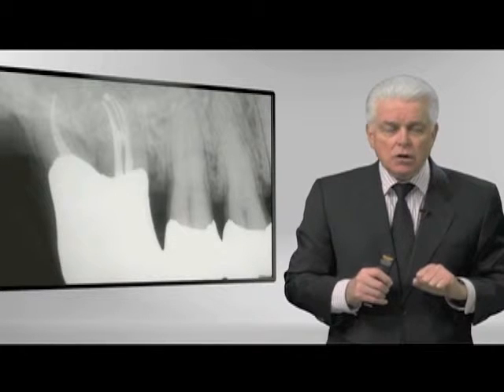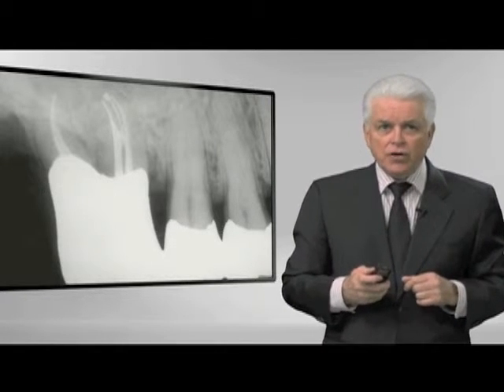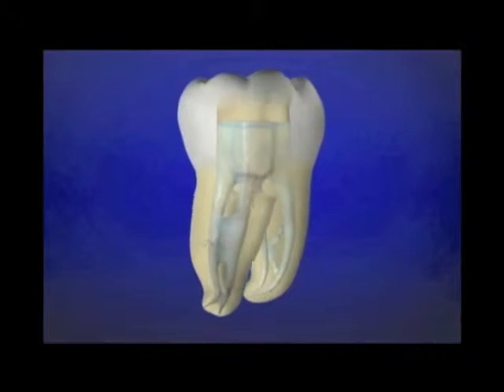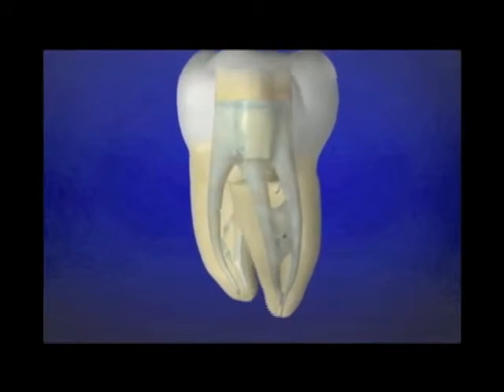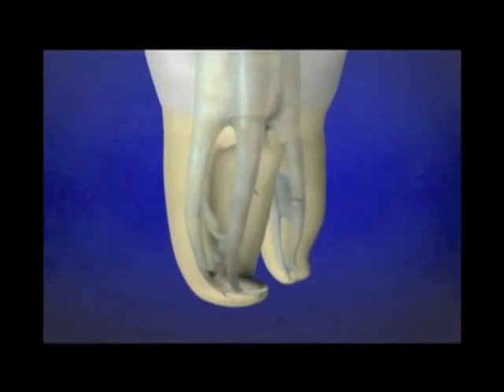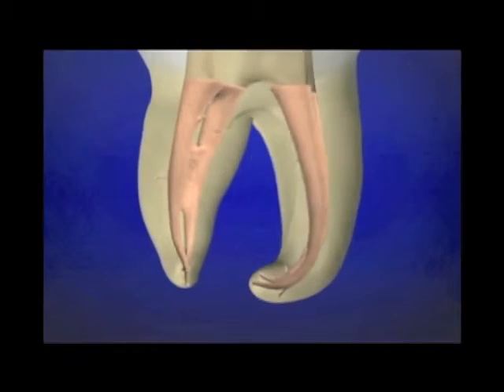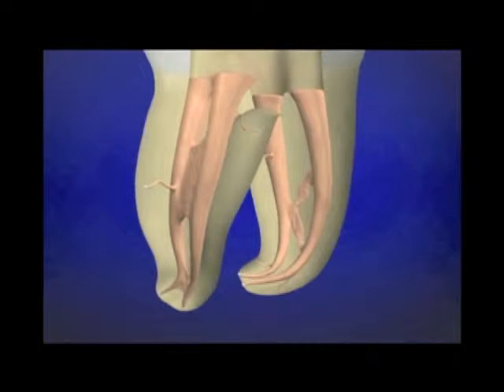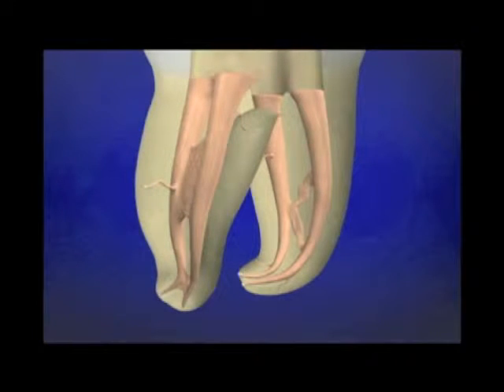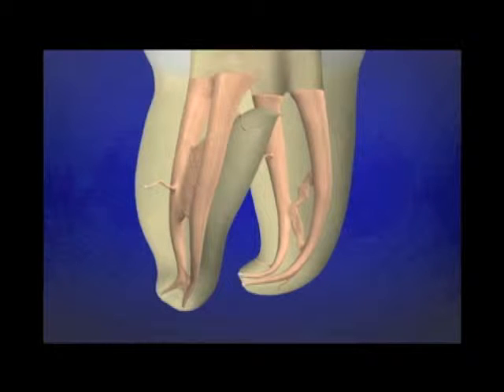We have an opportunity with warm gutta percha and sealer to fill in three dimensions. We can't even have discussions about filling a root canal system until we have the shape. The shape facilitates cleaning, and the shape facilitates the three-dimensional filling of root canal systems, as shown in this obturated animation.